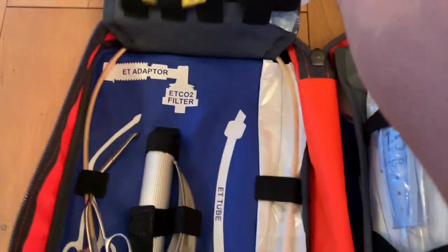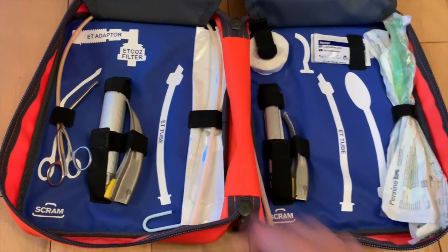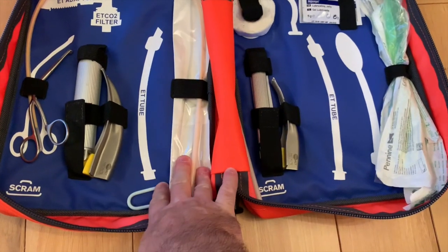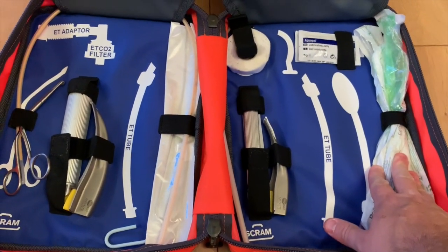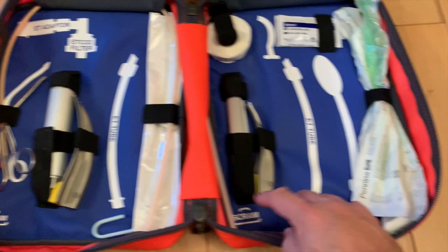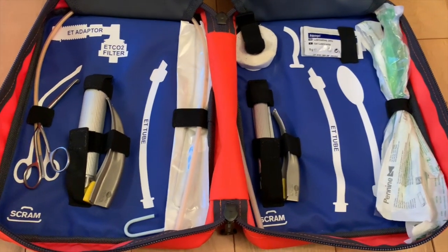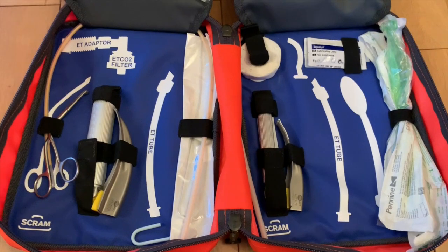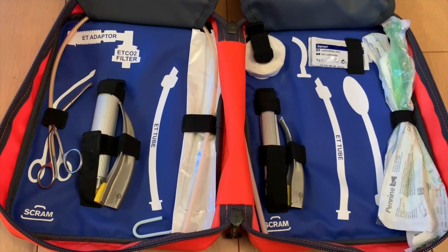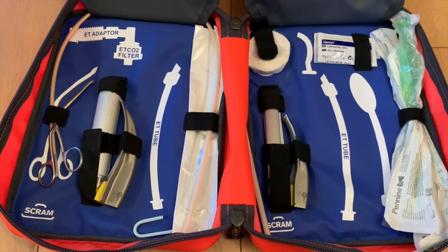By flipping both of these boards up we expose the equipment needed to perform intubation. The first thing you see is the primary work area, with kits on the left being for a large child and kits on the right being for a smaller child. Your stylet and suction catheter are appropriate for a pediatric airway. We have a bougie for a larger child and a bougie for a smaller child, with the business end running parallel with the spine of the bag so as to keep that section straight. Teams that prefer a straight bougie would keep the bougies within a specific bougie holder.